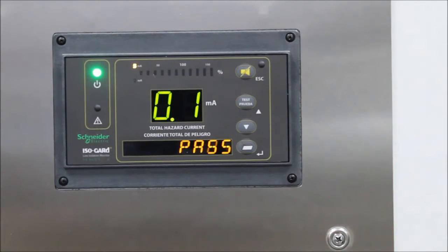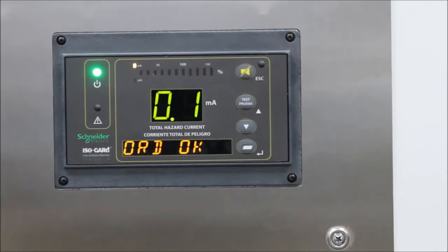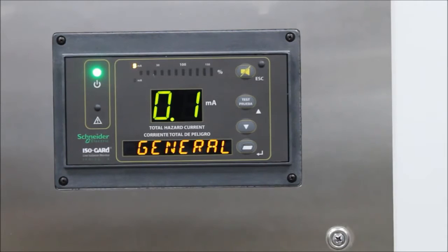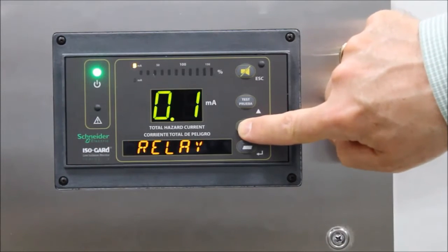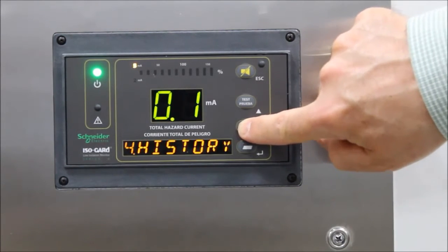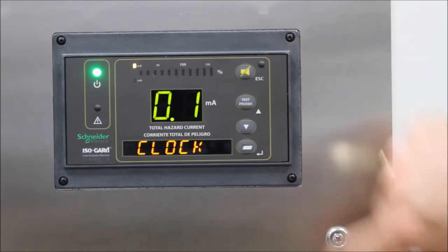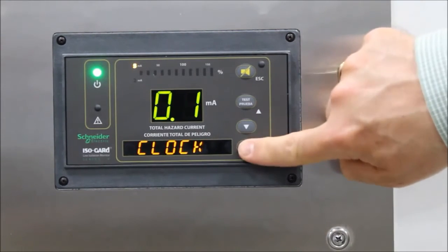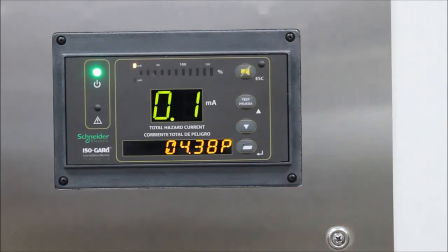Now we're ready to move through the next part of the menu. Using the down arrow, we're going to go through the menu until we get to number seven. That's our clock setting, and that's where we can enter our date and time. Press the folder button to go into the menu.